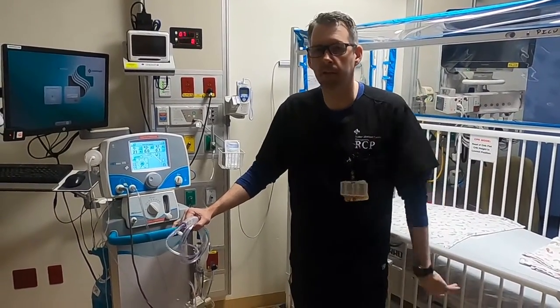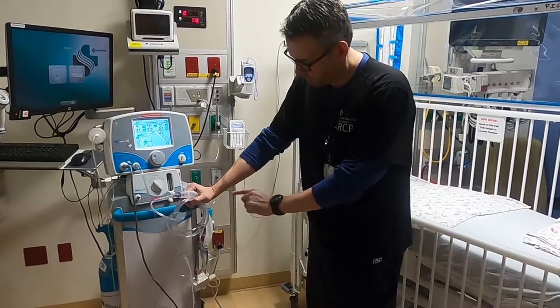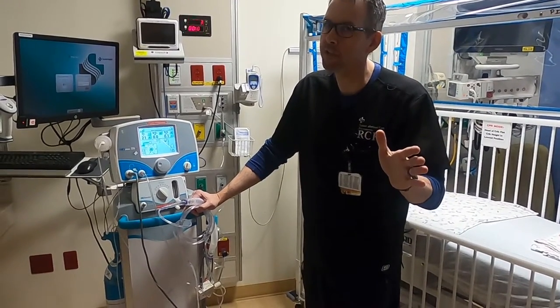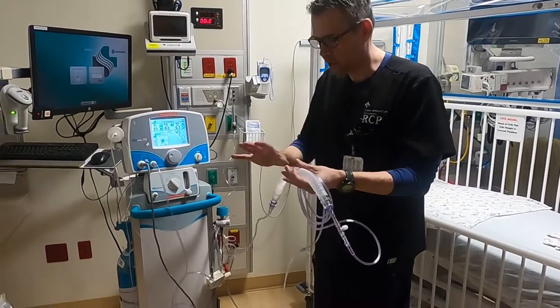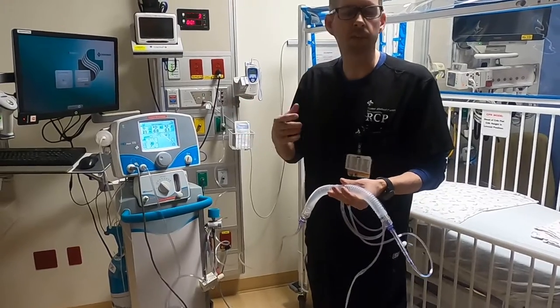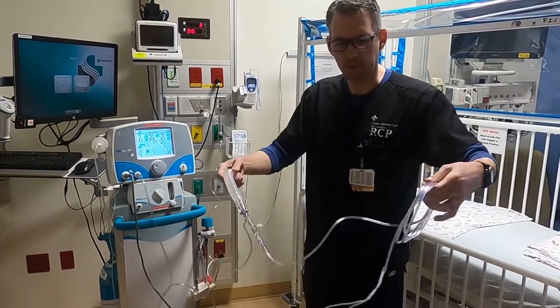Now we're going to assemble everything — how do we get the actual nitric to the patient? We set our nitric at whatever parts per million we want; usually 20 parts per million is where they start, but follow the physician's order. We put the injector module in line, and we need some kind of flow to get it to the patient no matter what modality — nasal cannula, ventilator, or IPV. First we're going to show you how to do it through a nasal cannula.